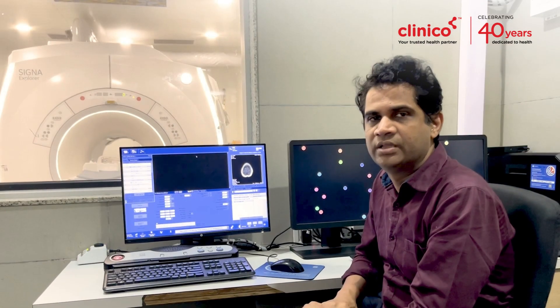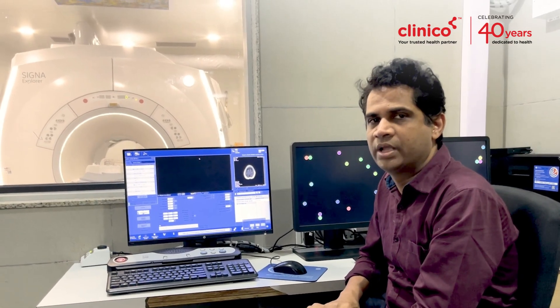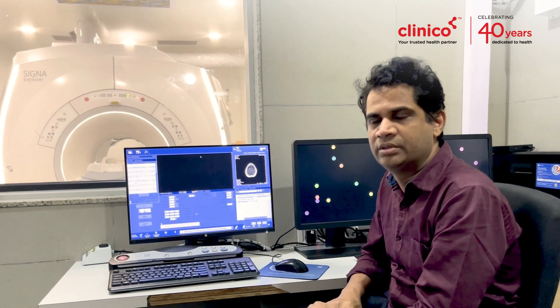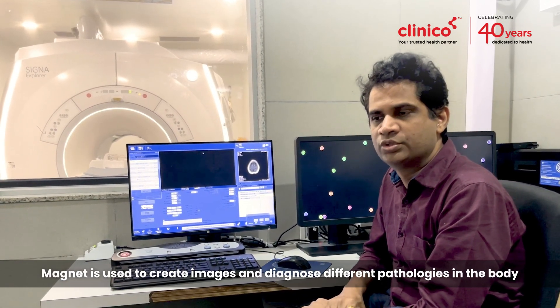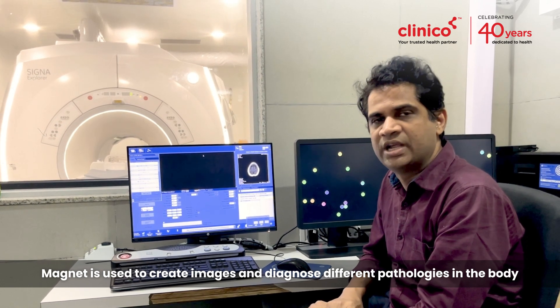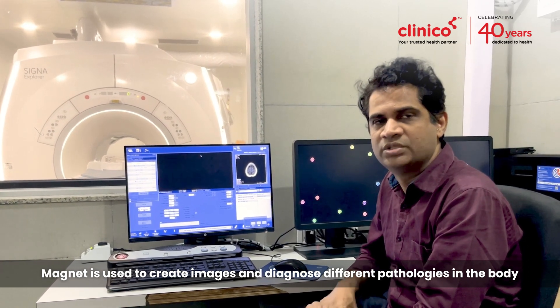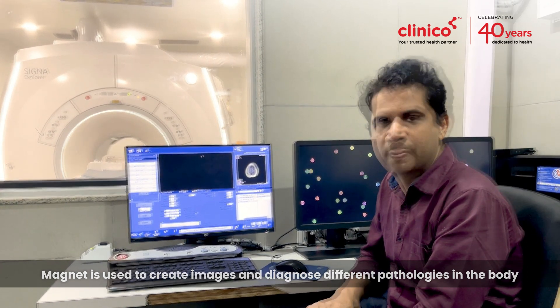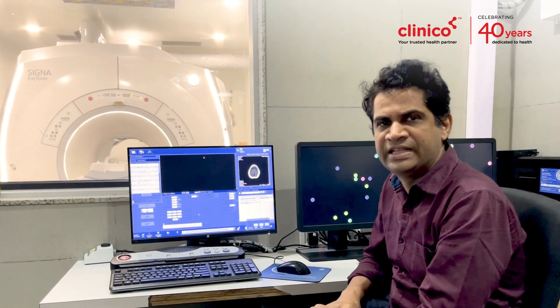We are sitting in the room of MRI. MRI is magnetic resonance imaging. A magnet is used to create images and diagnose different pathologies in the body.